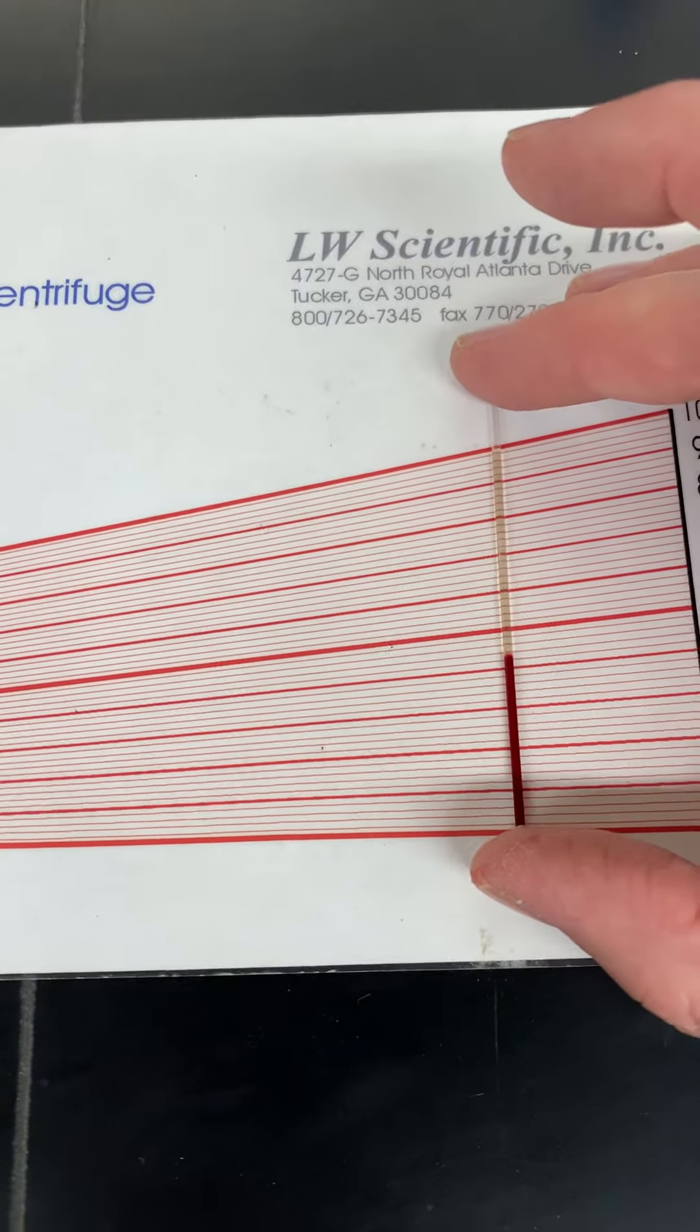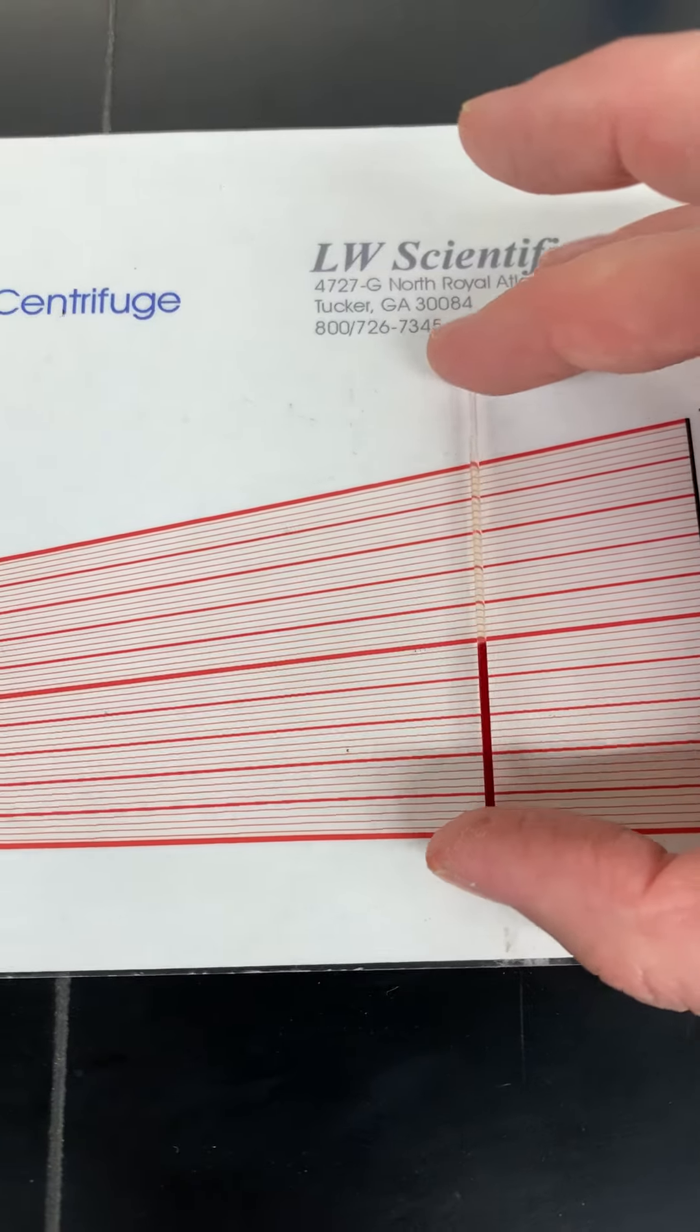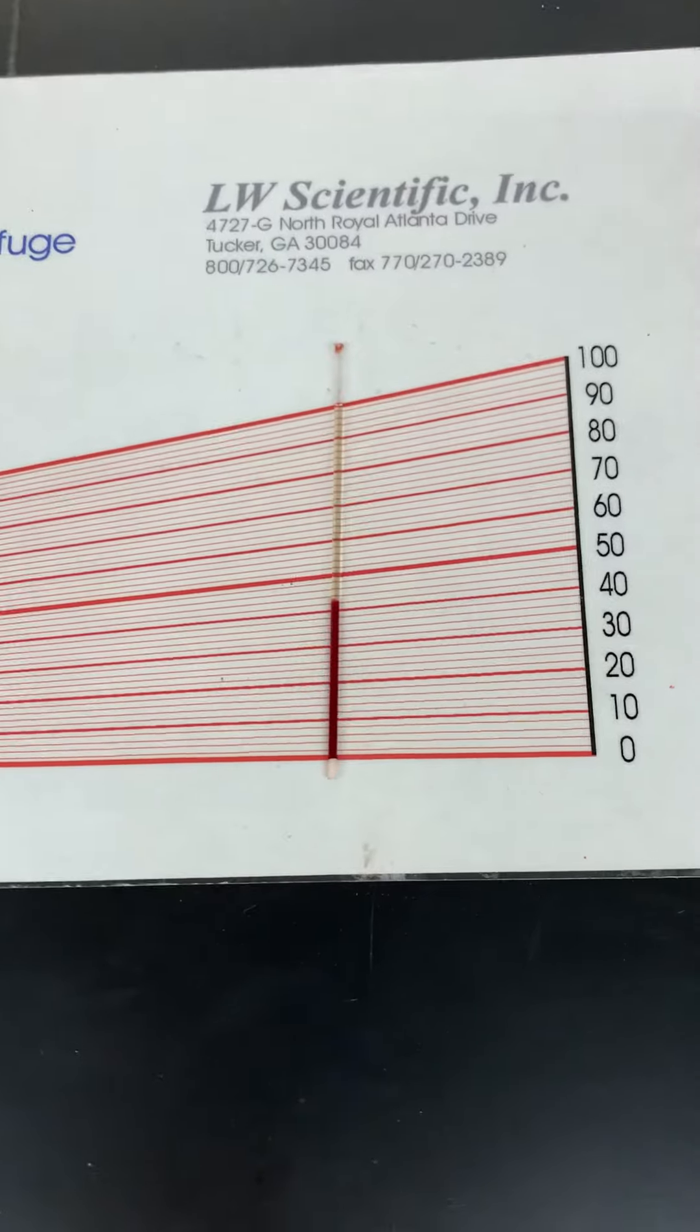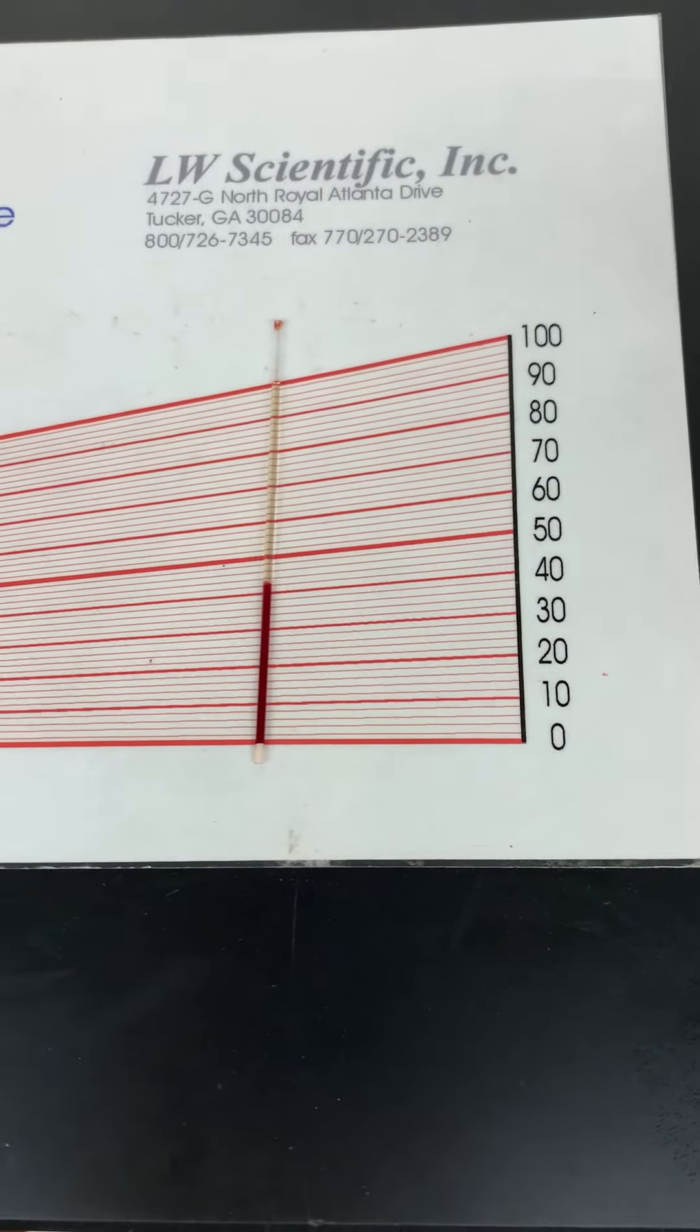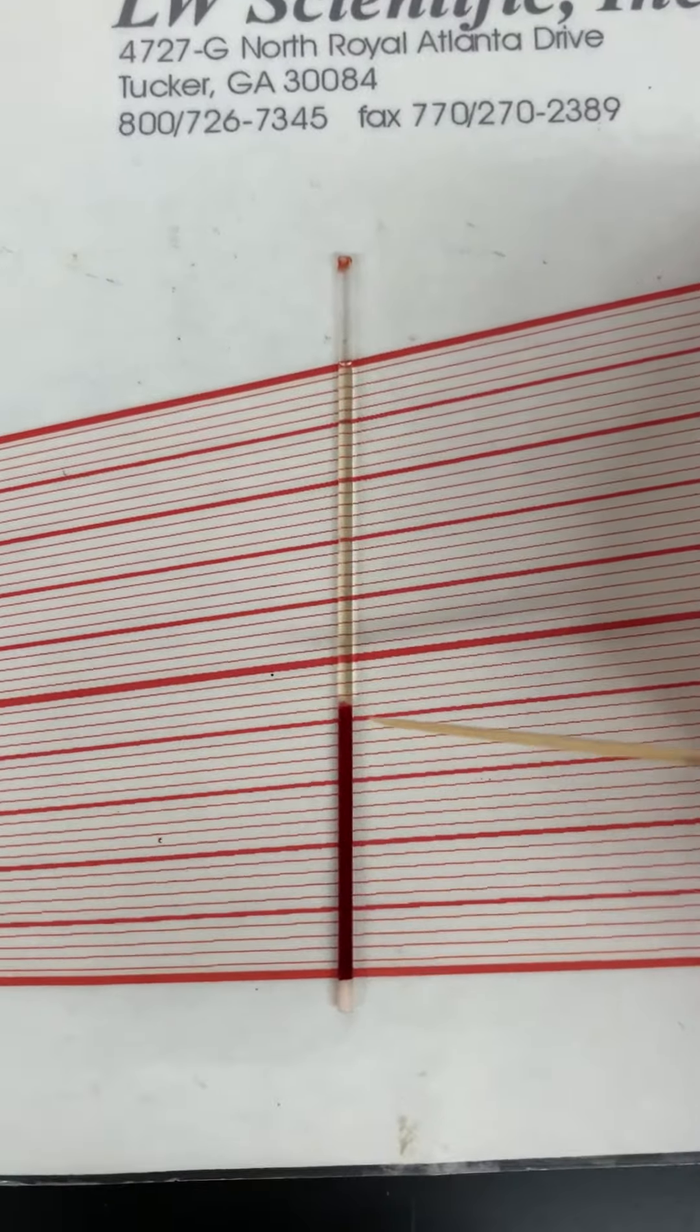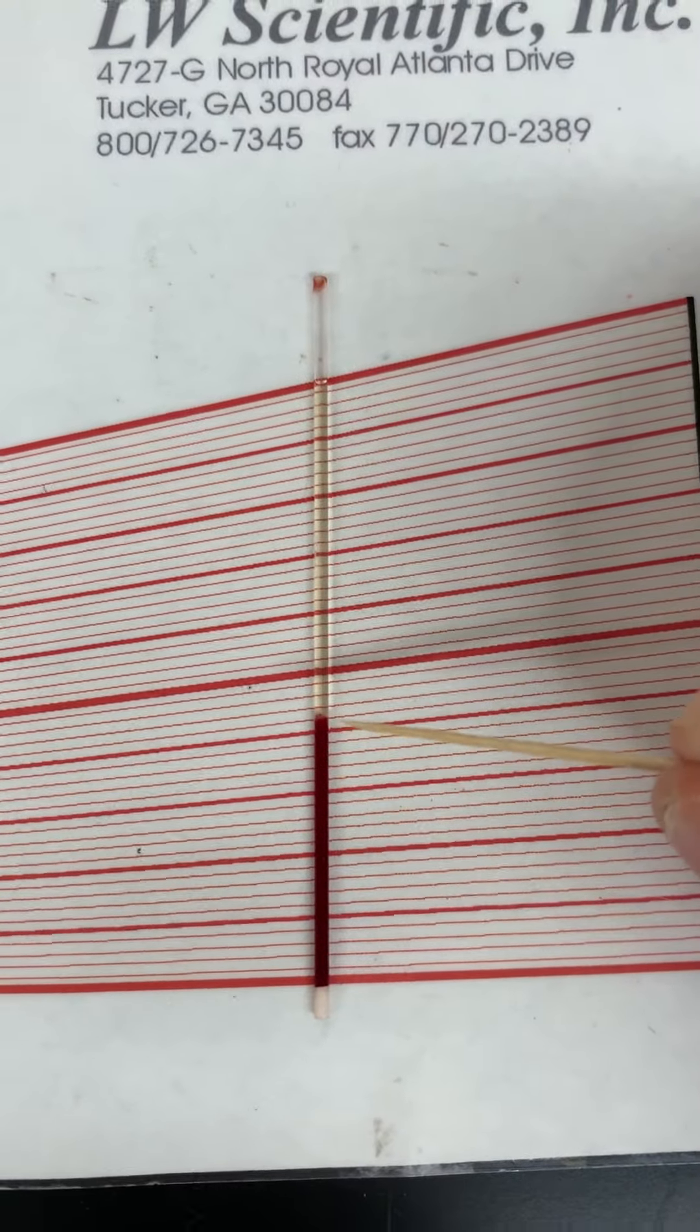Okay, it looks like it's right about there. So then do you see, I'm gonna use the toothpick, where my red blood cells end. It's this line, right?